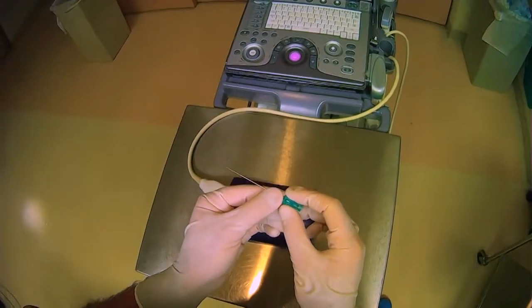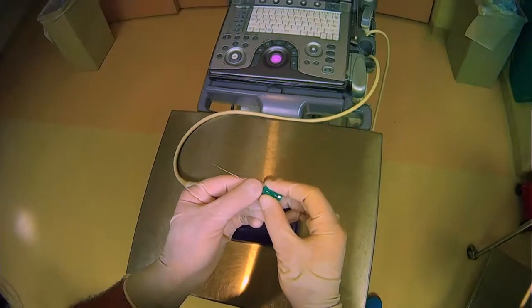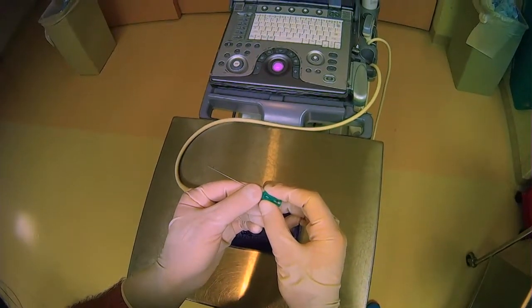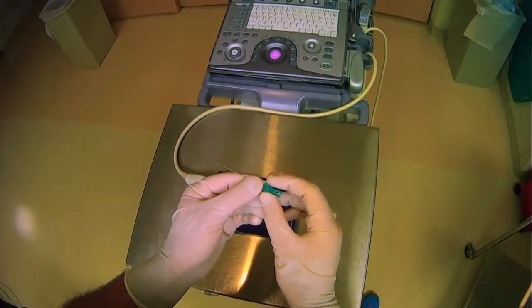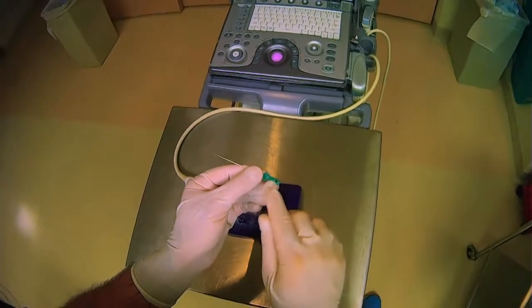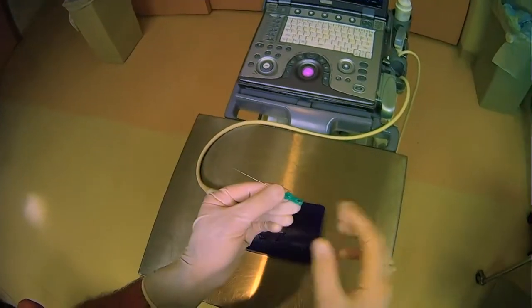So you want to keep this in an orientation that makes it clear where the bevel is so you can keep it facing up. So this arrow is facing up, the bevel is facing up.